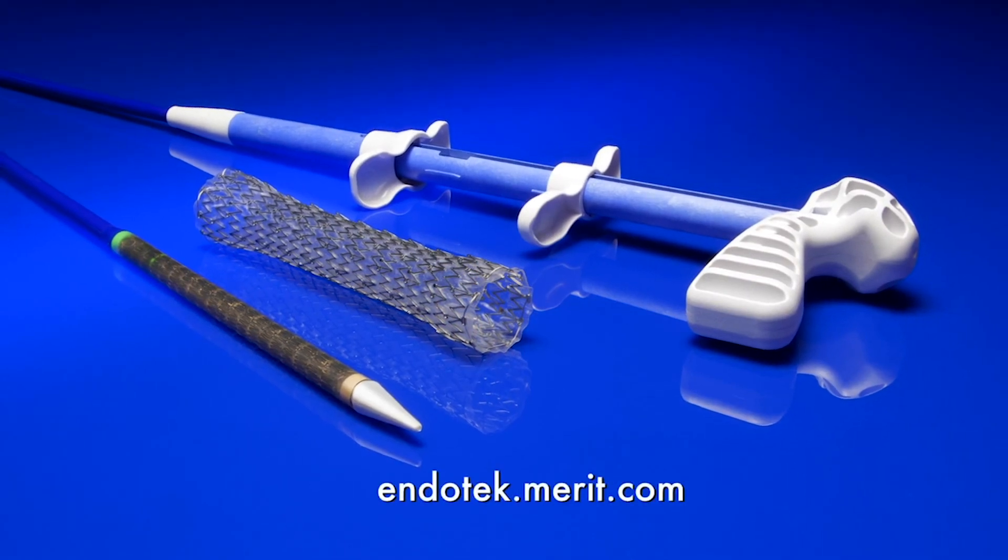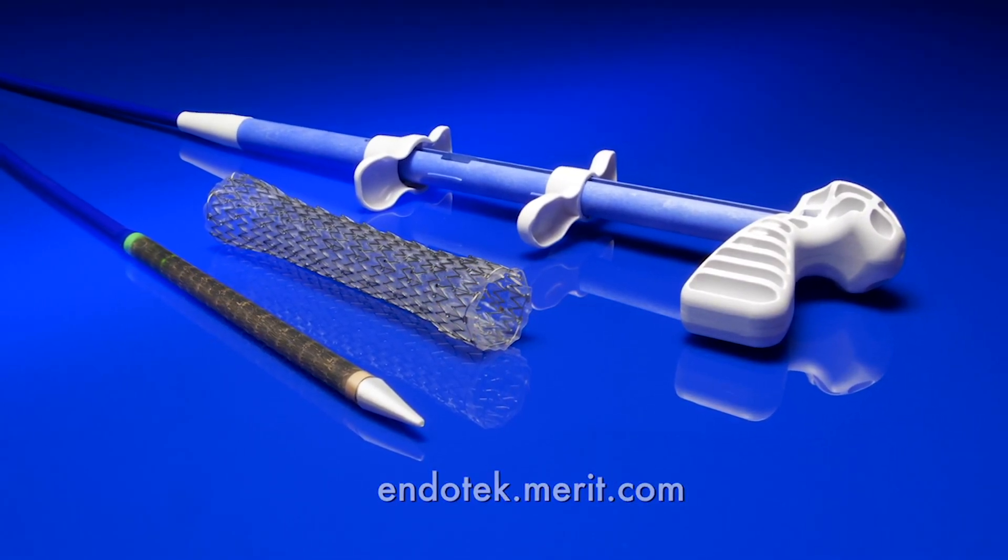The Endomax fully covered esophageal stent system continuing to expand the possibilities.